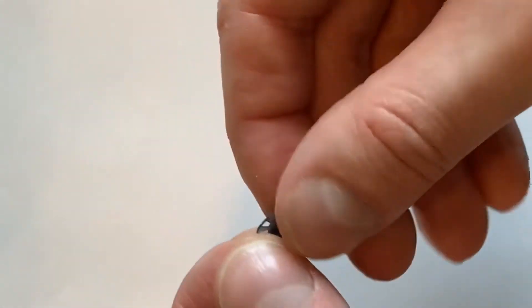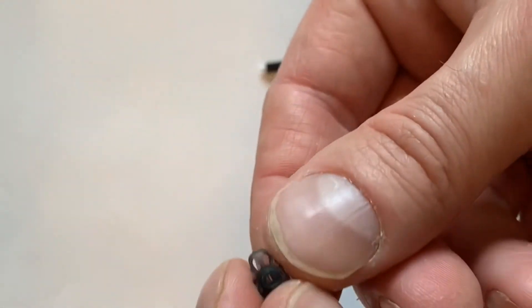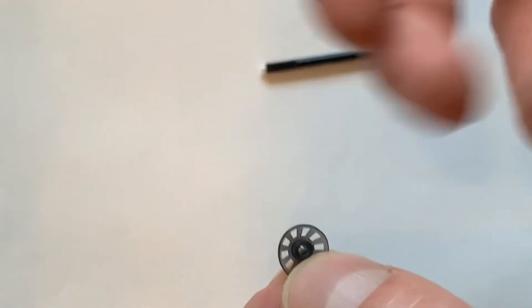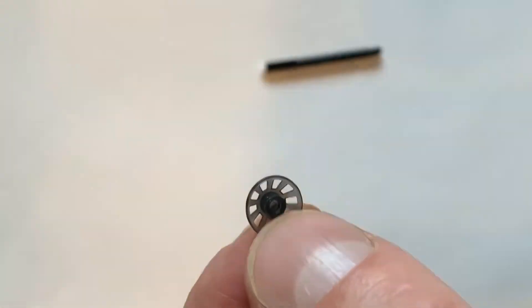And then you take your dome. Before you put the same dome back on, I want you to take a look on the inside. Make sure it's nice and clear. You don't see any wax inside. If you do see some wax, you can use a toothpick, you can use a toothbrush, whatever means to remove that wax. Or you can simply grab a replacement dome.